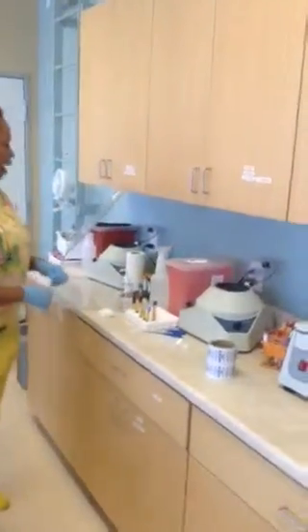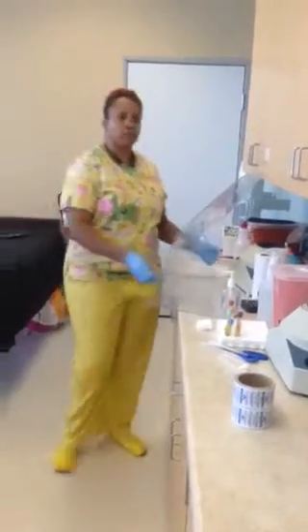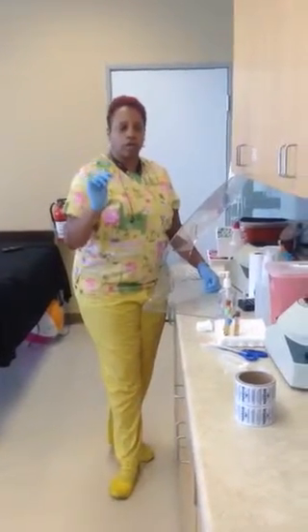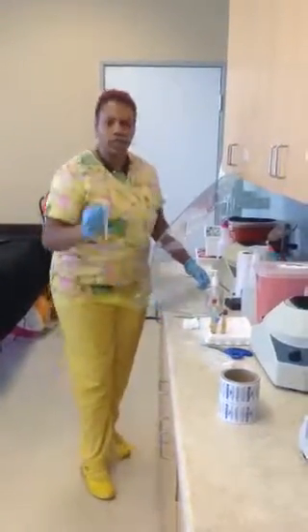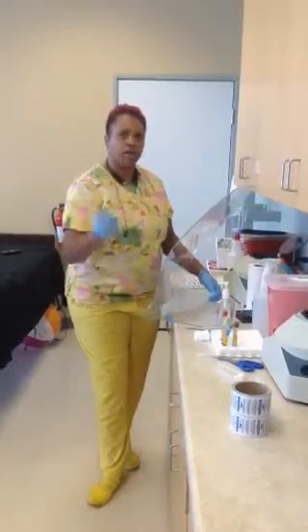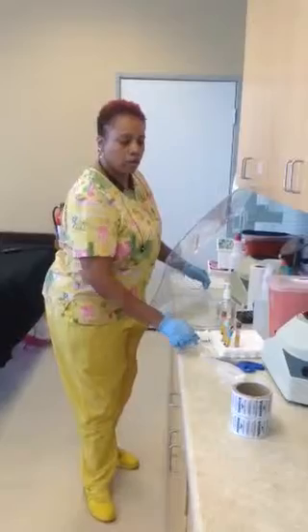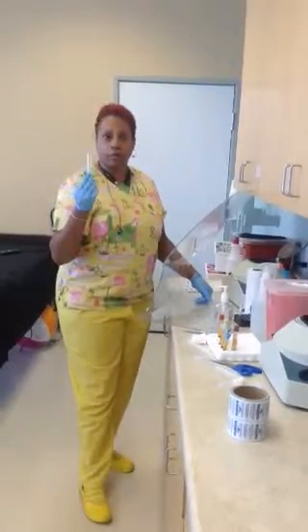For this lab, you're going to have some two-by-twos because you don't want to open the stoppers without something over the stopper top. If you need pickups for your short tubes to get them out, you need your pickups as well. You're also going to need pipettes — the pipette is to get the blood out without destroying the sample. You need your transport tubes, because that's what your plasma yield is going to go into.